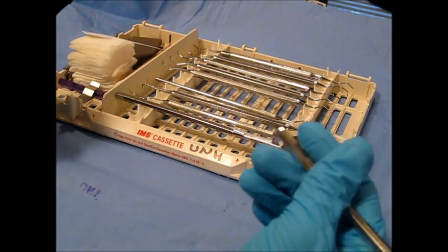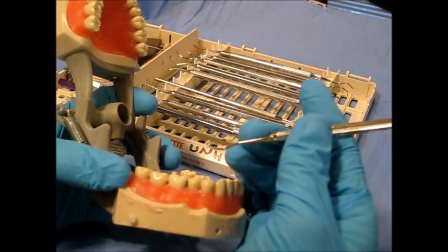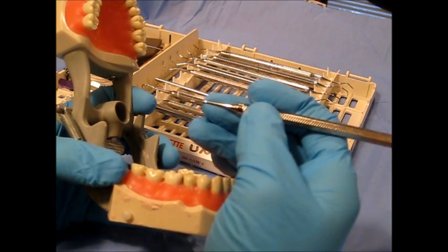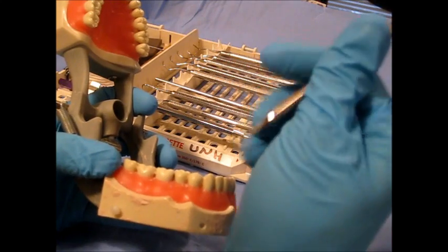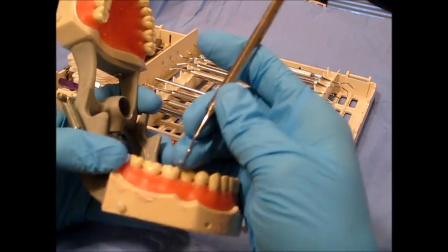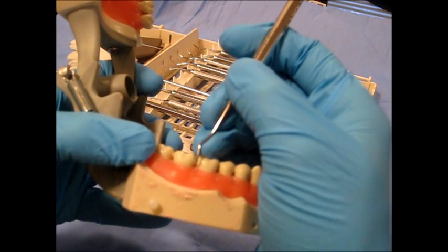It's utilized in the posterior region of the mouth, all supra-gingival surfaces, and is adapted from the distal line angle to the distal interproximal space.